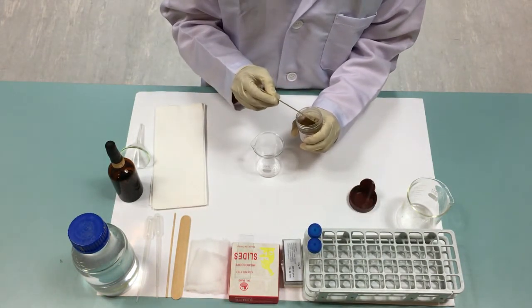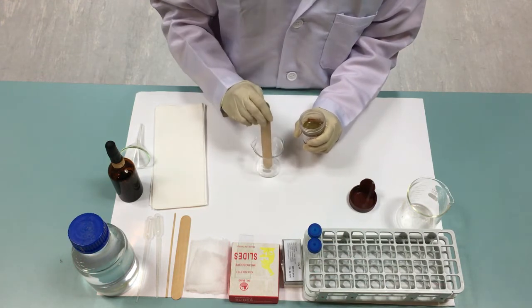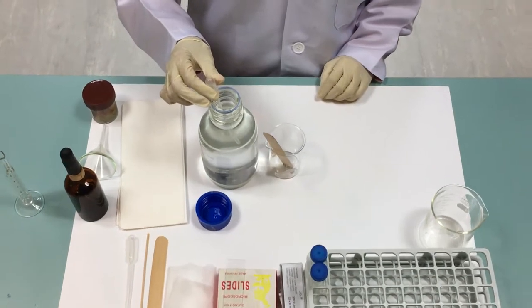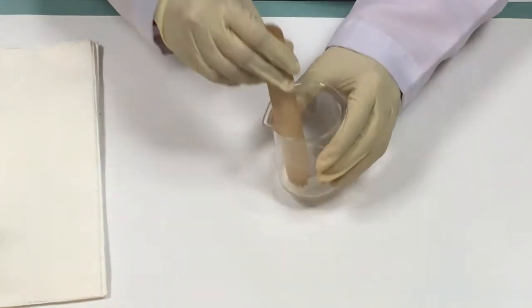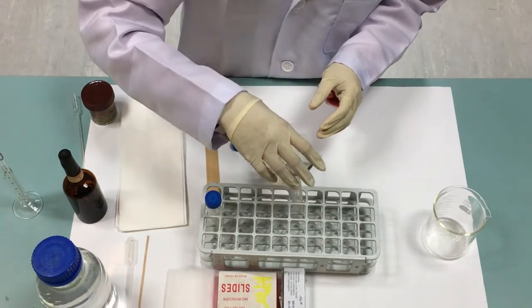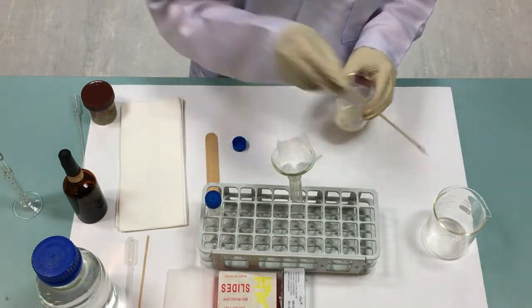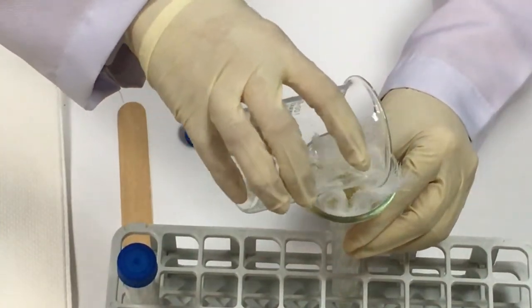By using a tongue depressor, put 1 gram of stool in a beaker. Add 7 ml of zinc sulfate into the beaker. Then, mix them well. Filter the mixture with a gauze while transferring it into a centrifuge tube to filter out the fecal debris and other particles.